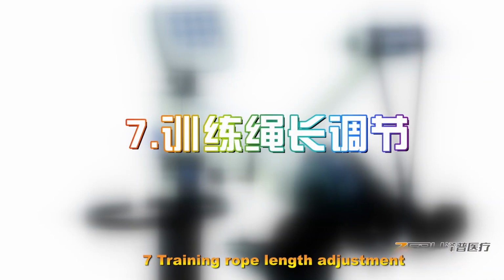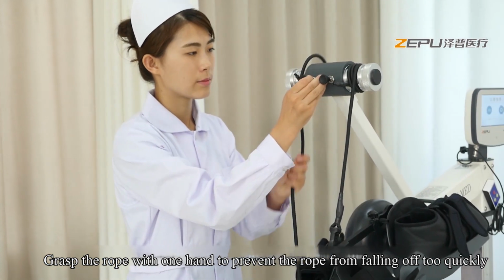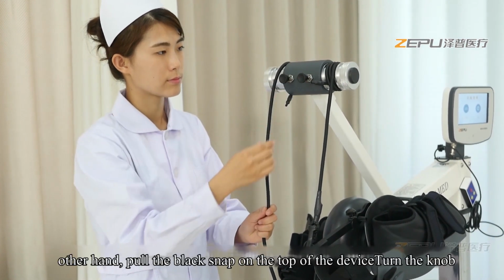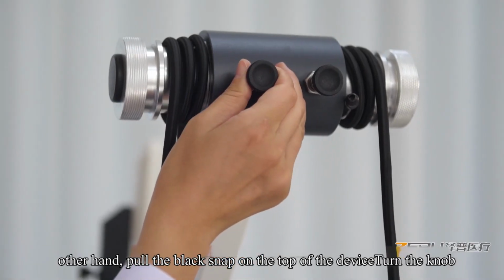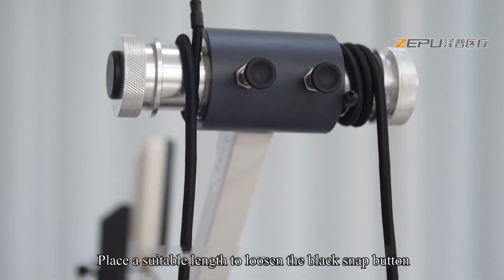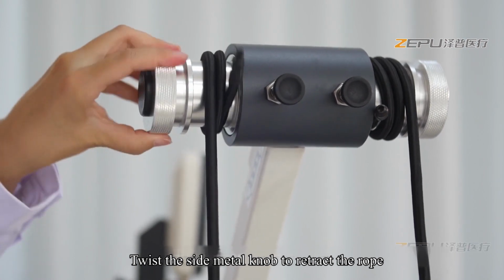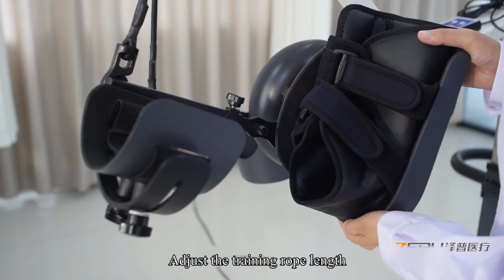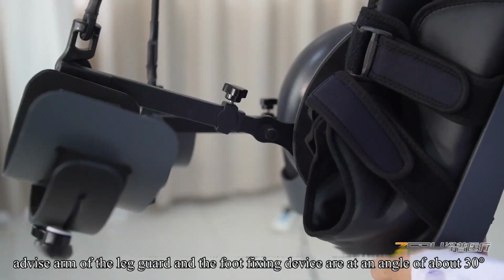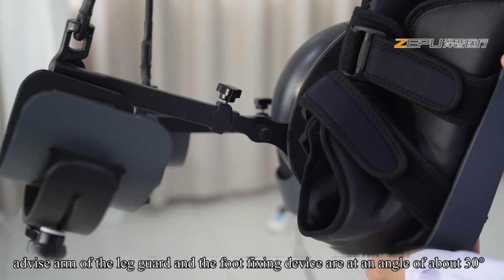Seven, training rope length adjustment. Grasp the rope with one hand to prevent the leg guard from falling off too quickly. With the other hand, pull the black snap on the top of the device. Place it at a suitable length, loosen the black button, and twist the side metal knob to retract the rope. Adjust the training rope length. It is advisable for the leg guard arm and the foot fixing device to be at an angle of about 30 degrees.